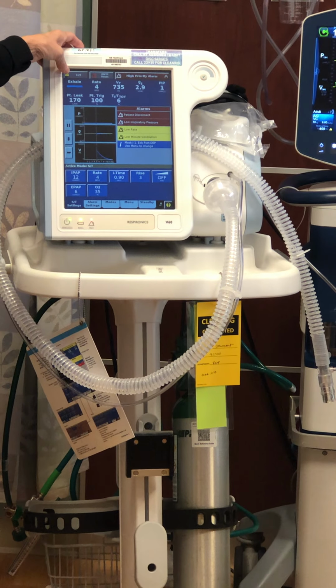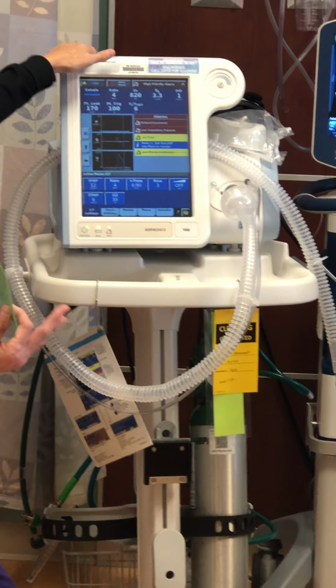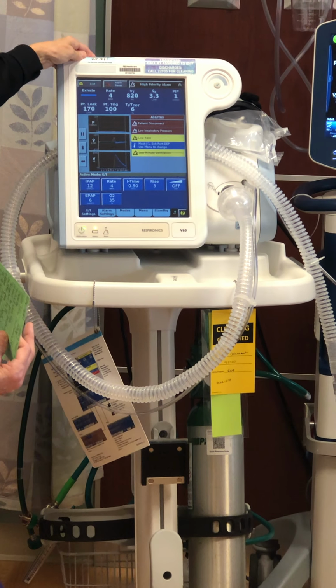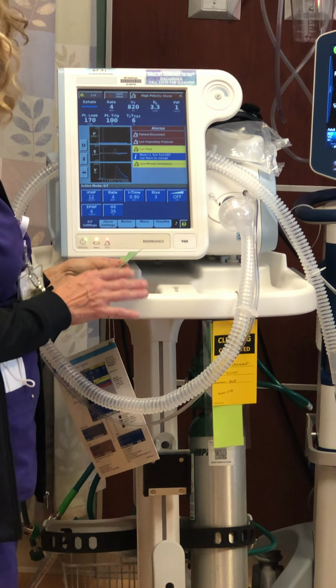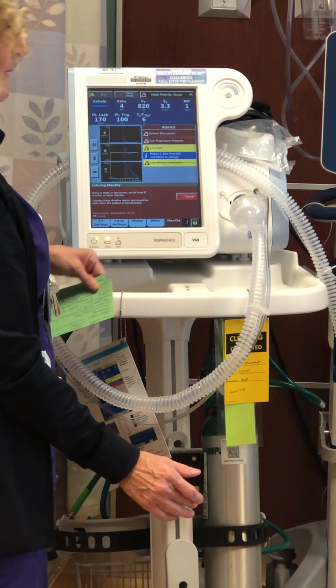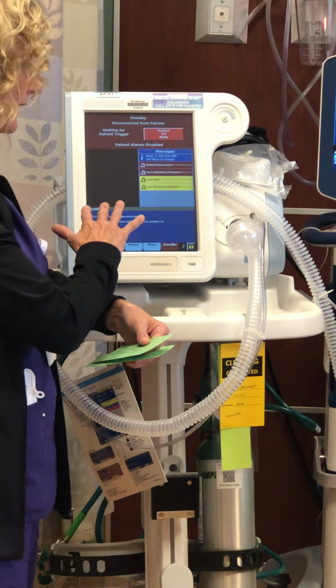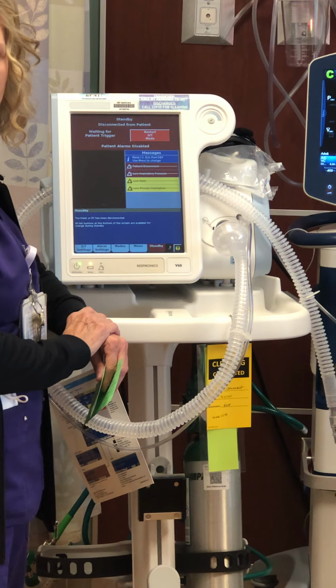The silence mode is up here. If you're taking the patient on and off, that's going to trip the alarm. You can pop the silence. If the patient's going to take a break from BiPAP, you can put it into standby, and basically that creates a holding mode, and it'll sit and it'll wait for a patient reconnect.